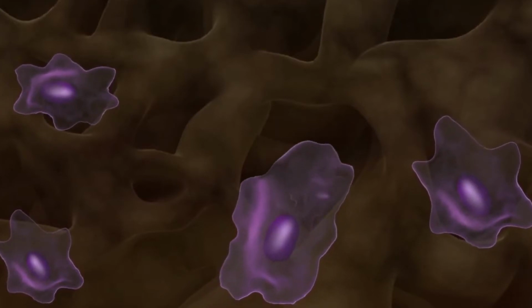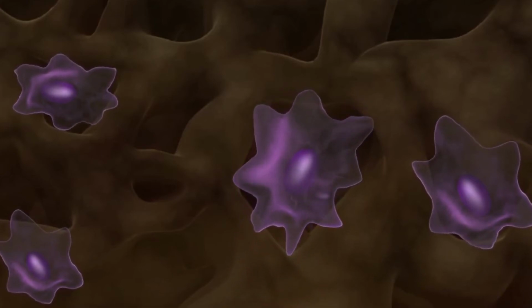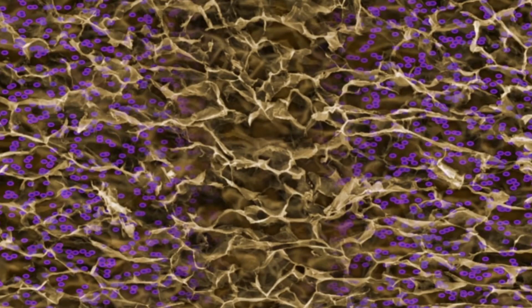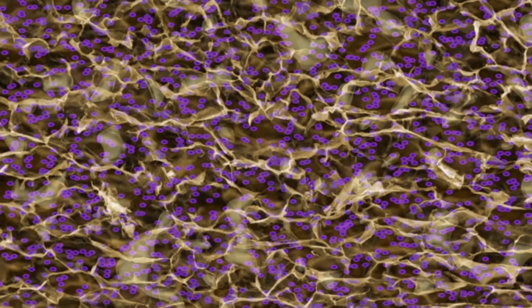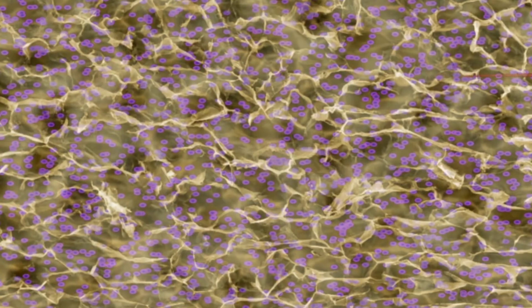The interconnected network of large engineered pores provides a scaffold for the cells to rapidly enter, migrate, and attach themselves. The pore sizes and distribution are consistent, ensuring efficient infiltration of cells throughout the graft and thus uniform tissue repair throughout the matrix. The collagen graft promotes fibroblast activity and acts as a foundation for the cells to deposit new collagen. Vascularization of new tissue follows the initial infiltration of the fibroblasts to form fully functional tissue.